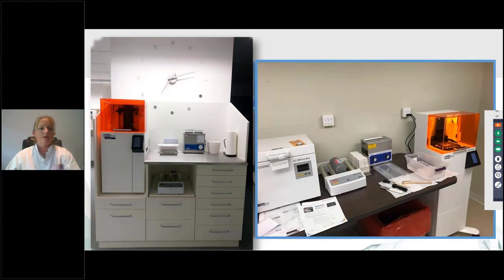Yes. Okay, cool. So you might decide to do something like this, where it's part of your technology that you have in your office. The pedestal is totally optional. If you have something like a wood floor and there's a lot of vibration, you might want to use the pedestal because it has some shock absorbing features. But a lot of people will go to IKEA or do something creative like this.